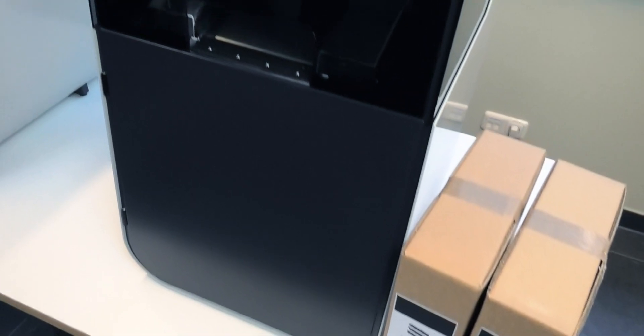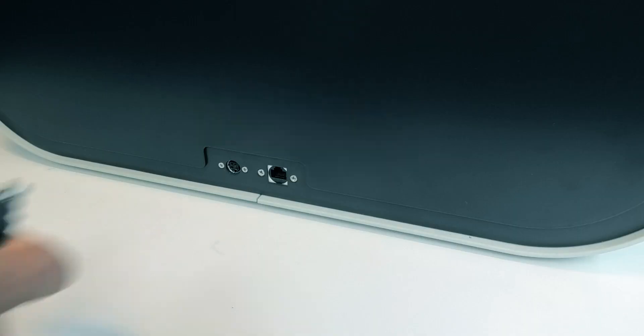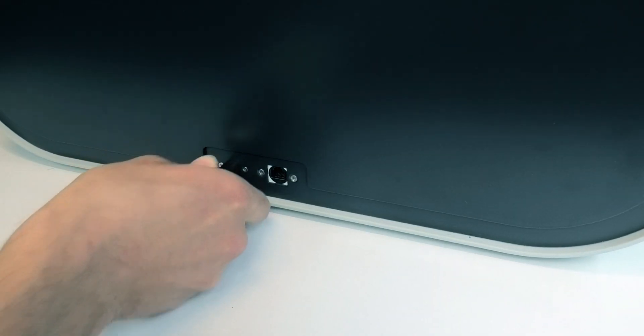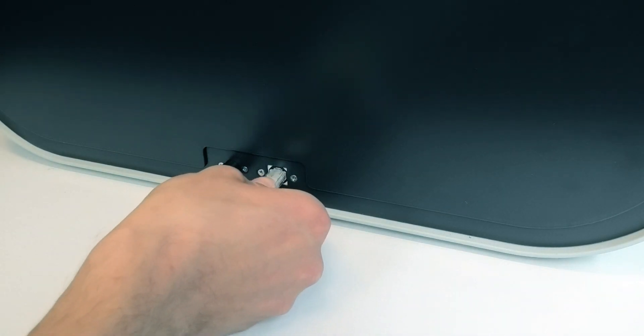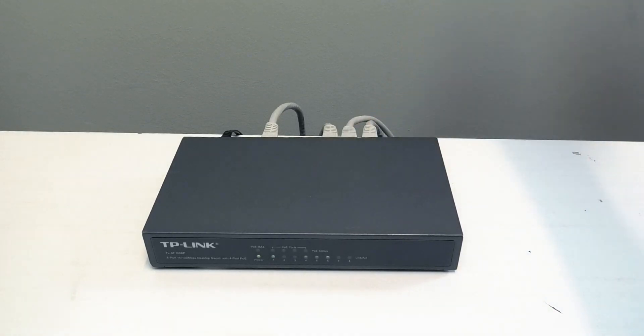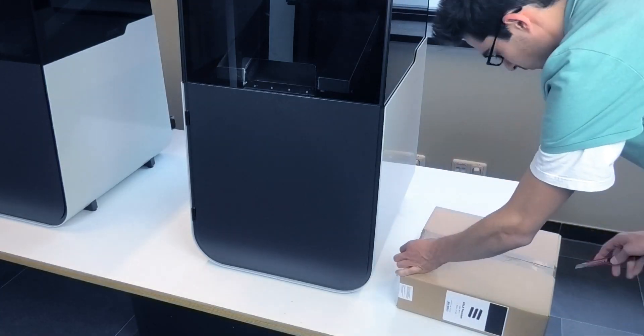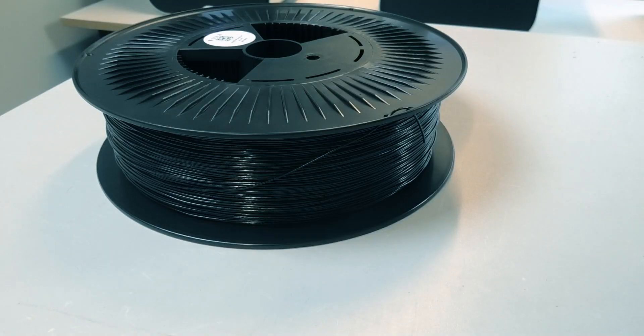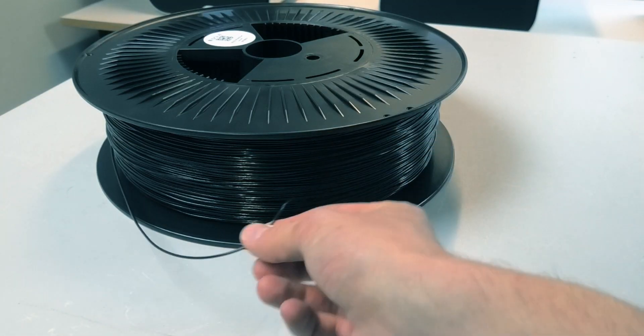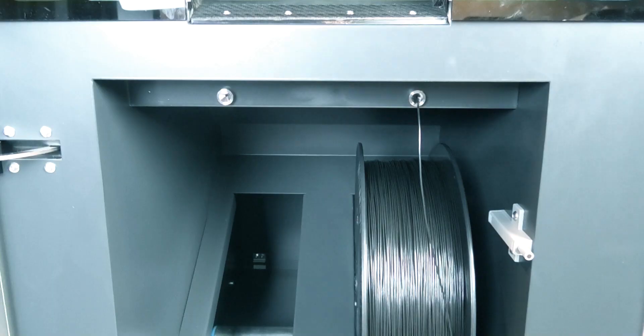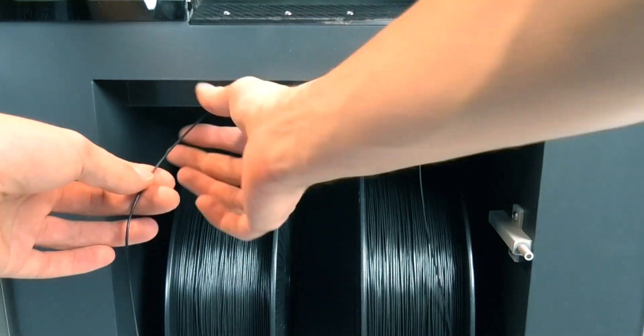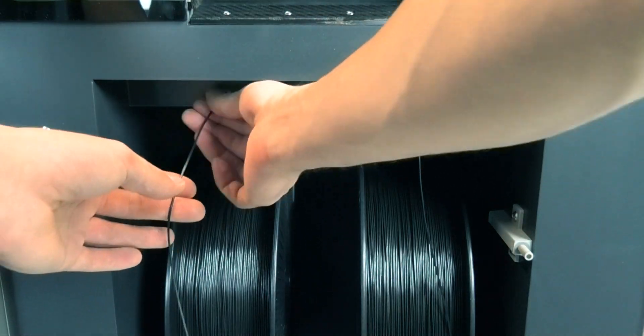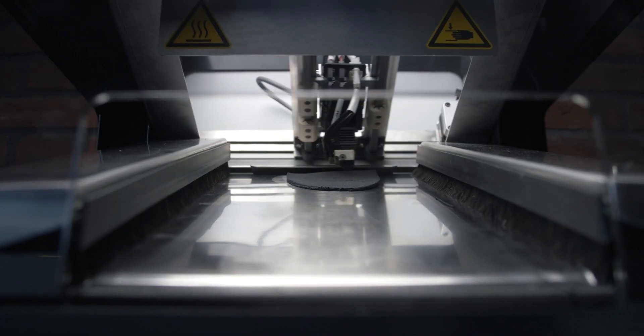The Sol Podo printer has been designed as a plug-and-play solution. Connect the machine to the power grid and the local network. Then it's time to load the Sol Premium filament. We operate two spools of material to provide full 24-7 production uptime.